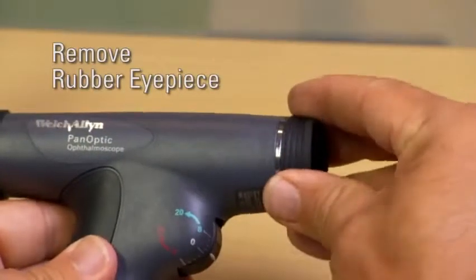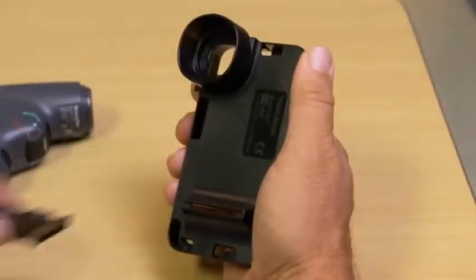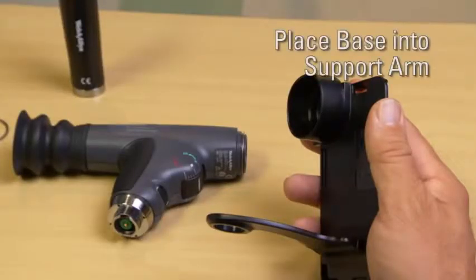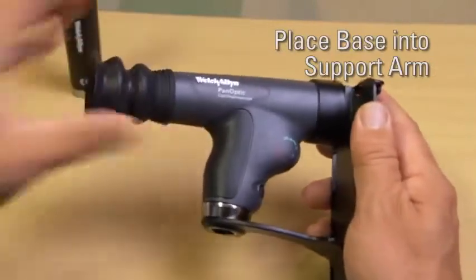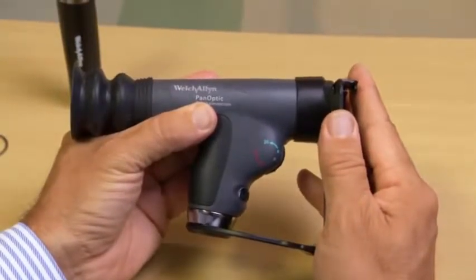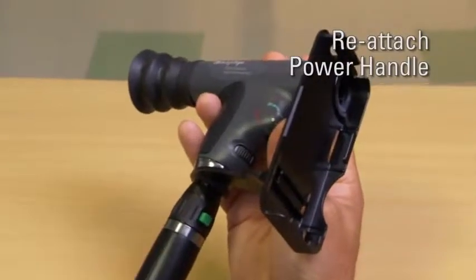Next, remove the rubber eyepiece and silver O-ring. Slide the support arm fully into the slot onto the iExaminer adapter. Position the ophthalmoscope into the iExaminer adapter by placing the base of the ophthalmoscope into the support arm. Then, firmly push the front of the adapter onto the eyepiece of the ophthalmoscope. Push and twist the power handle back onto the ophthalmoscope.